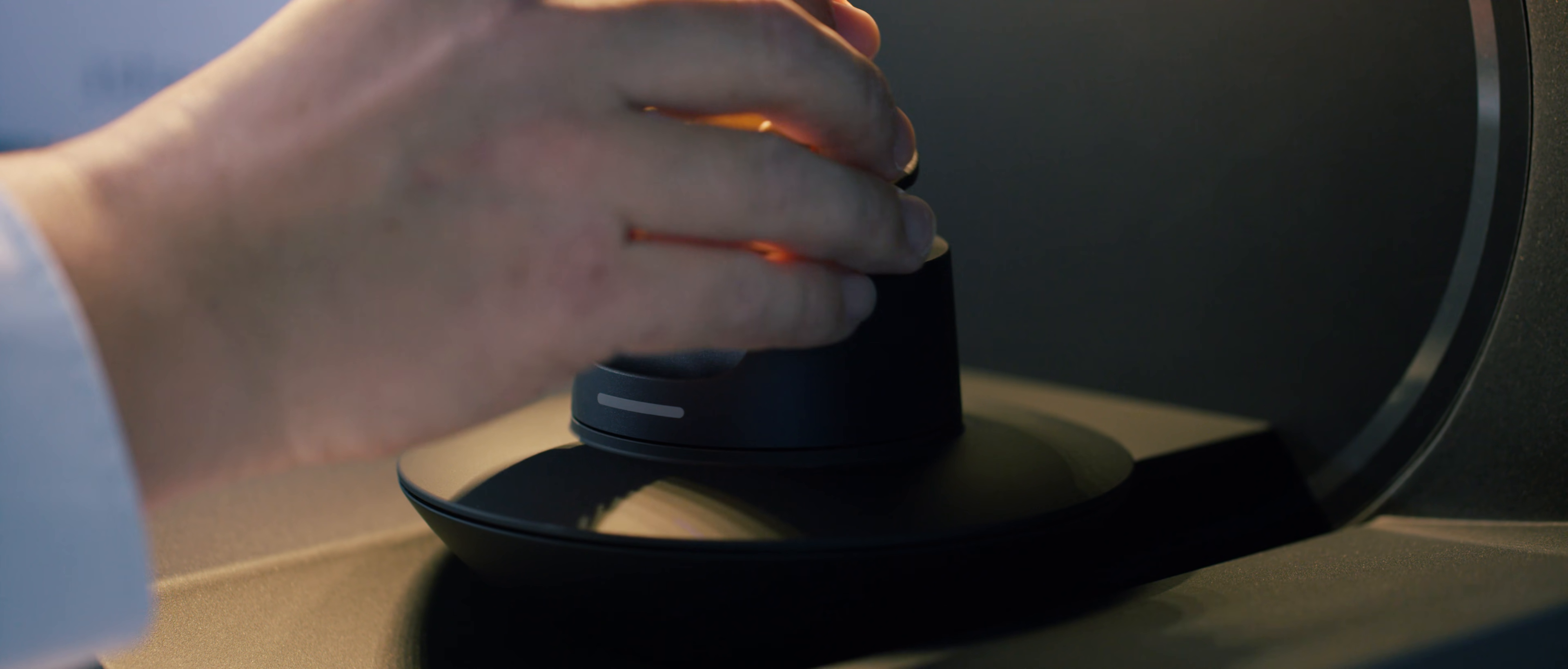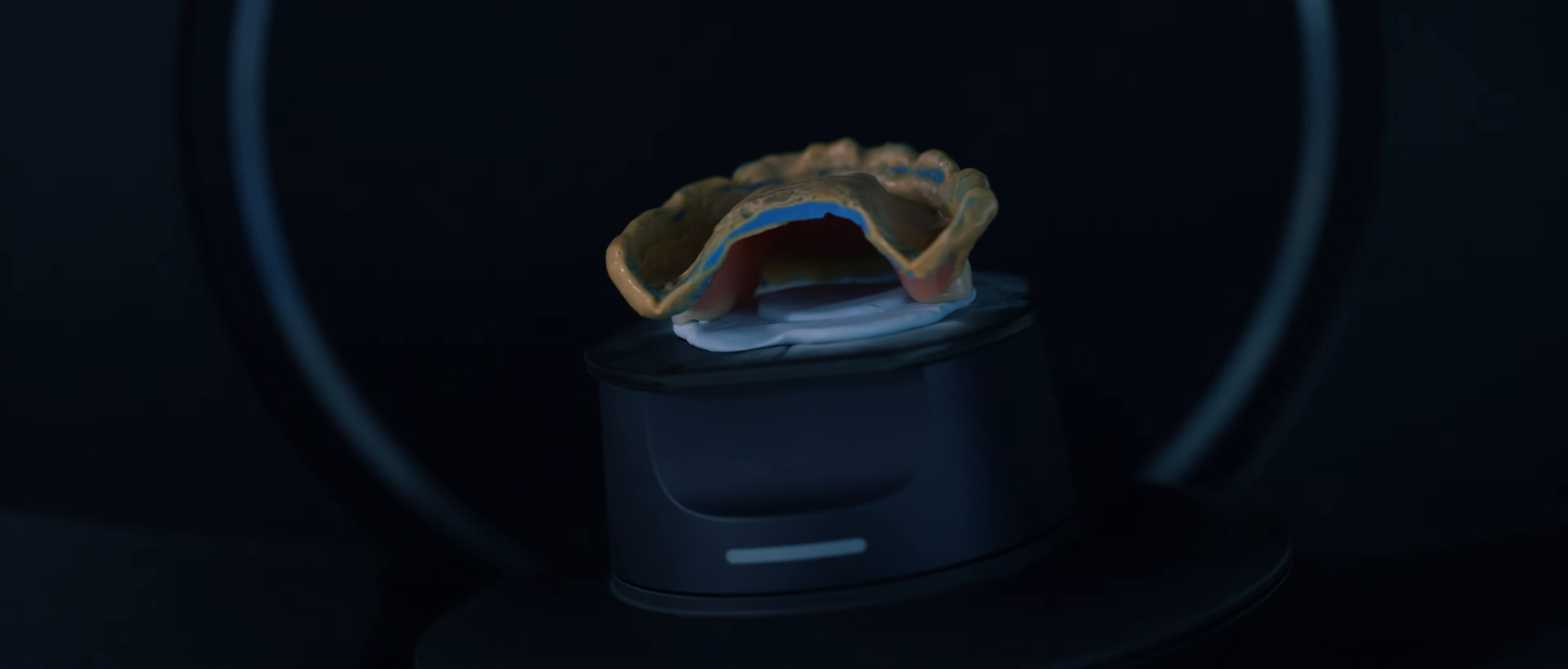The impressions are quickly and easily digitized with the three-shape scanner in the lab.